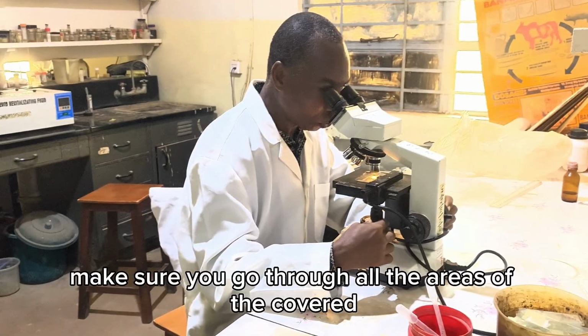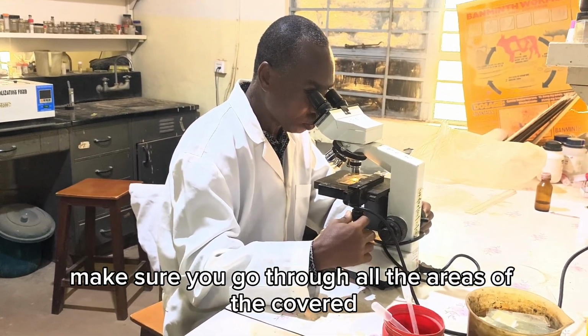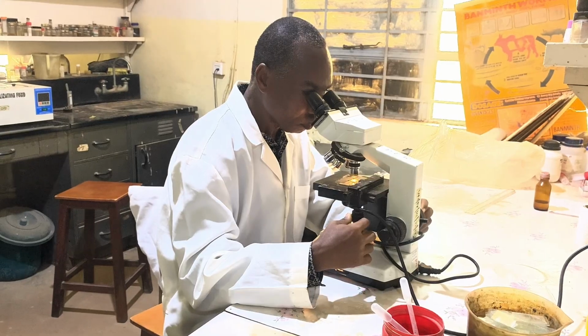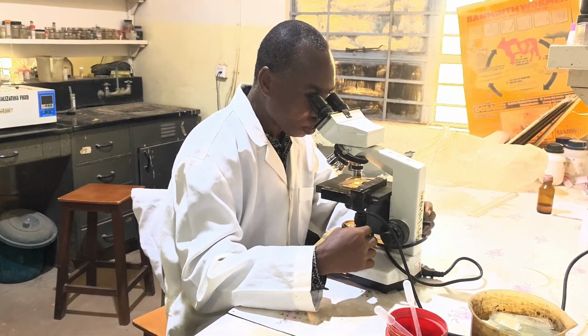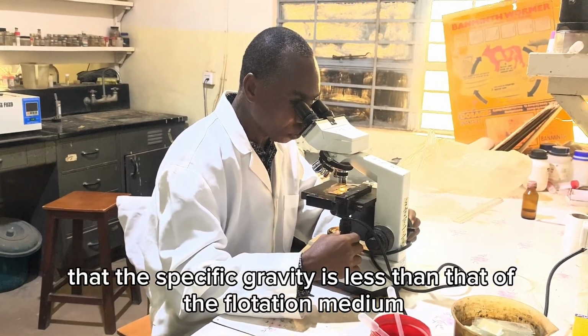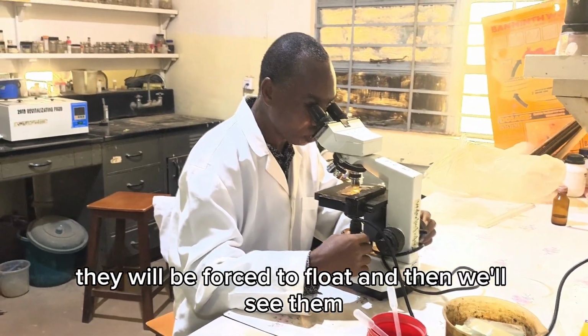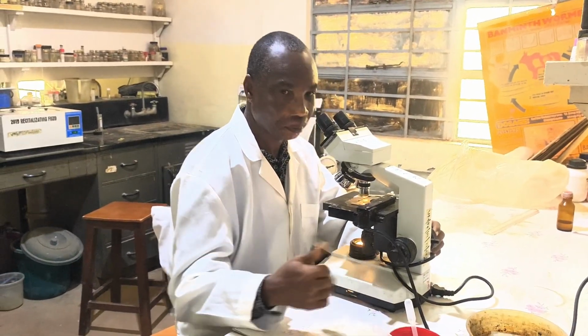Make sure you go through all the areas covered by the cover slip. And if there are any parasites whose specific gravity is less than that of the flotation medium, they'll be forced to float, and then we'll see them under the microscope.